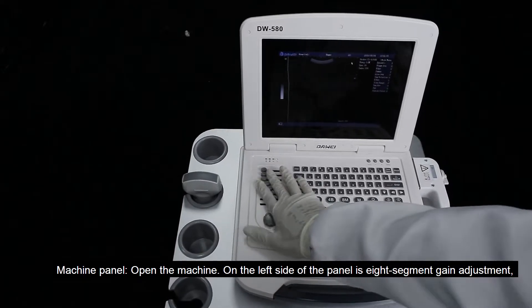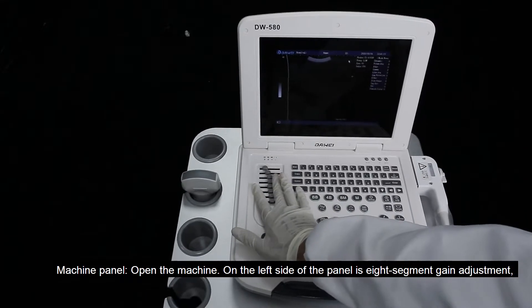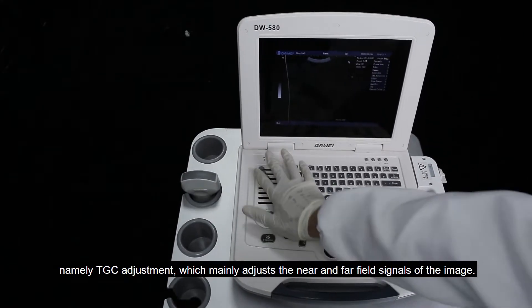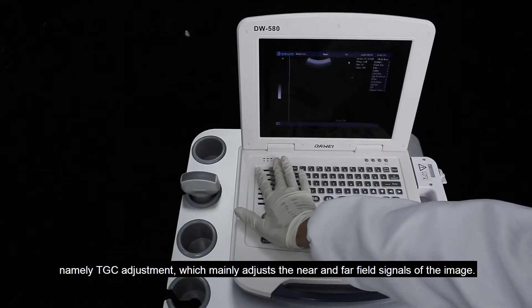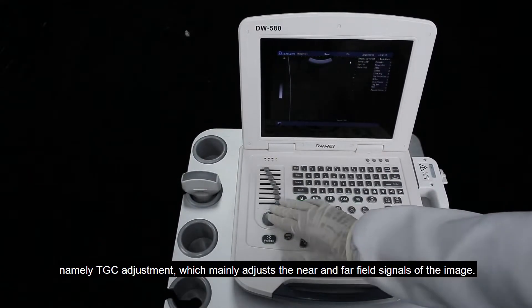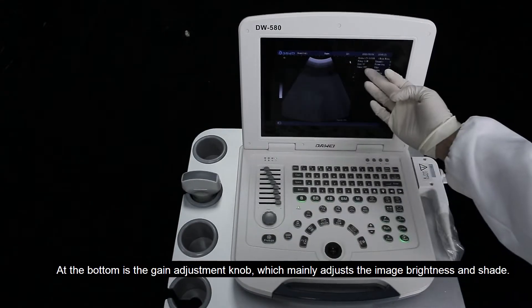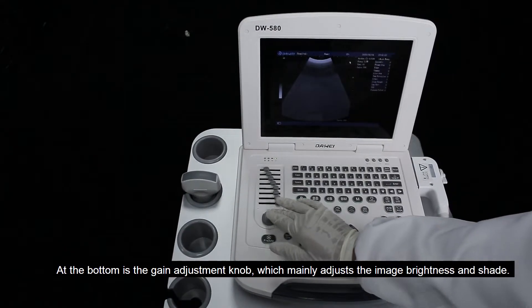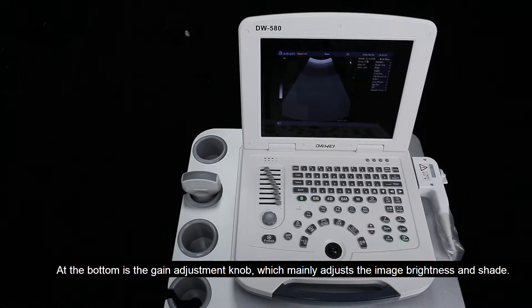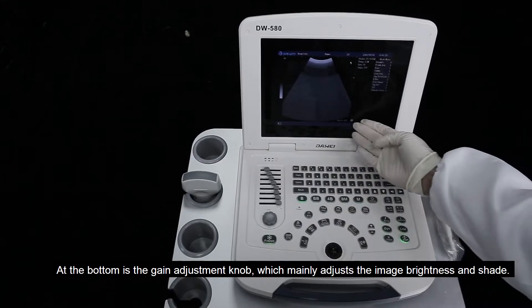On the left side of the panel is the 8-segment gain adjustment, namely TGC adjustment, which mainly adjusts the near and far-field signals of the image. At the bottom is the gain adjustment knob, which mainly adjusts the image brightness and shade.